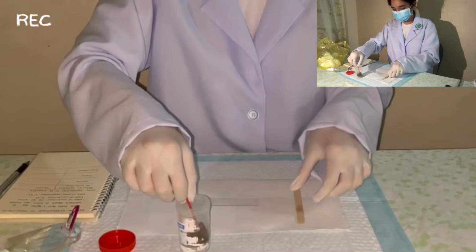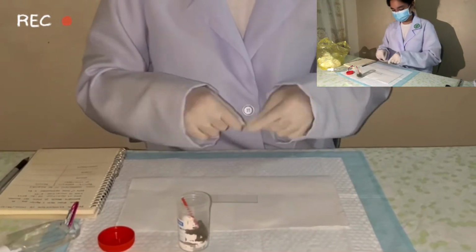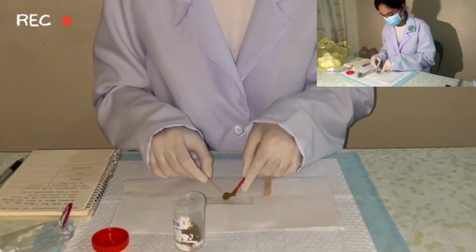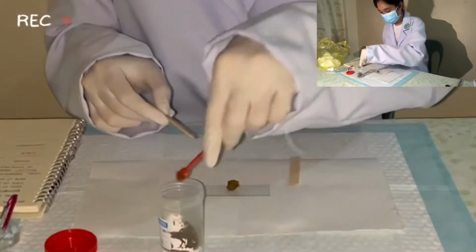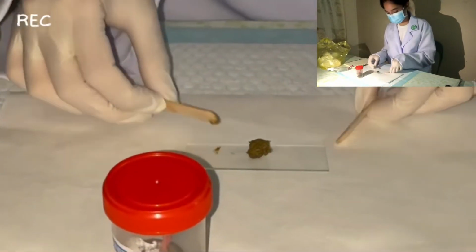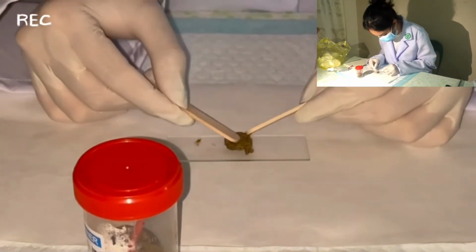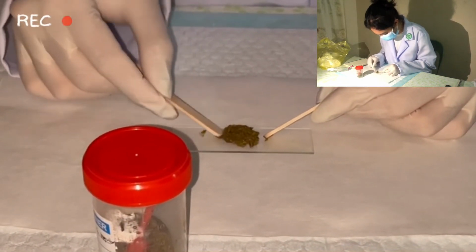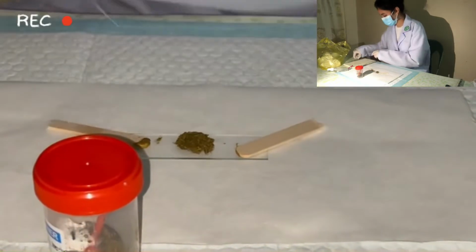I use a glass slide where I can put the specimen, and I broke the applicator stick into two for me to be able to examine it properly and identify the parameters that we need to assess, which are the physical properties of our specimen: the color, odor, and consistency of it. Last one is to note the information that we assess on the stool.